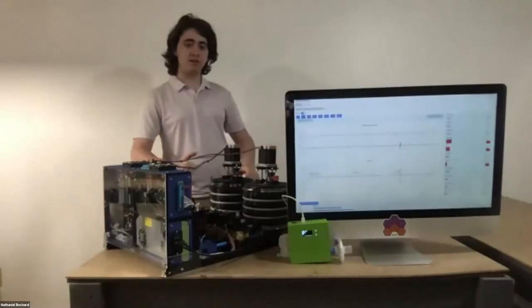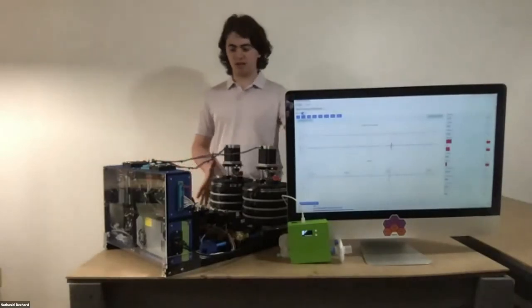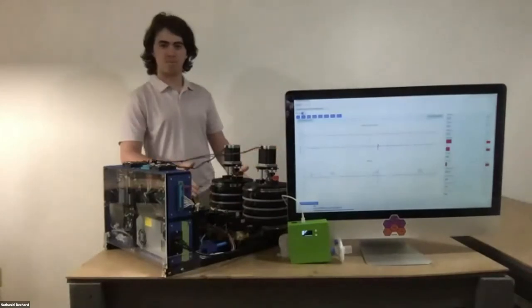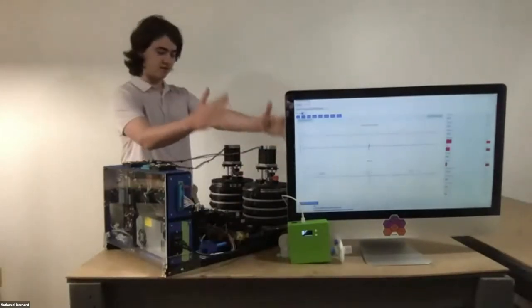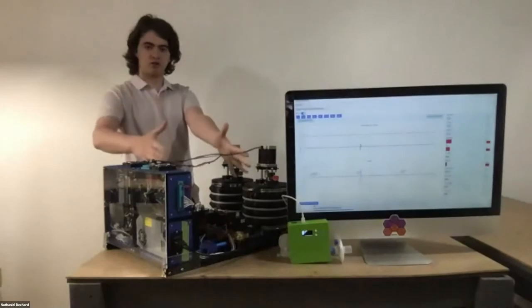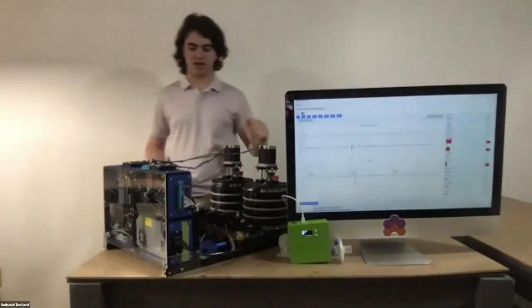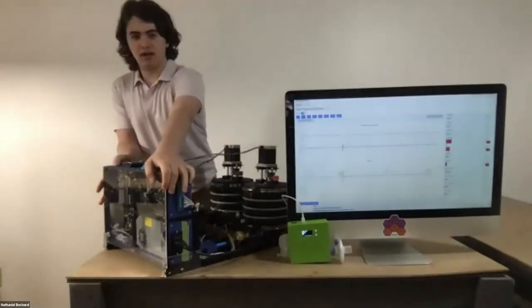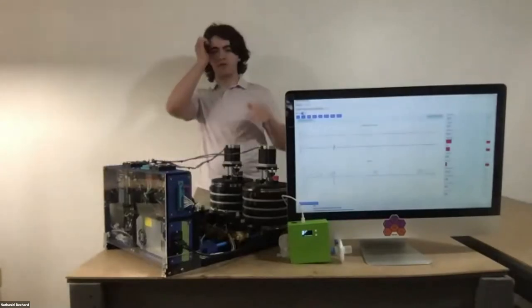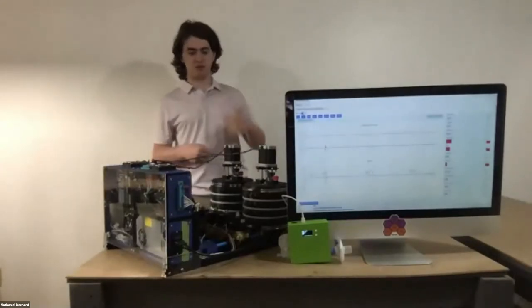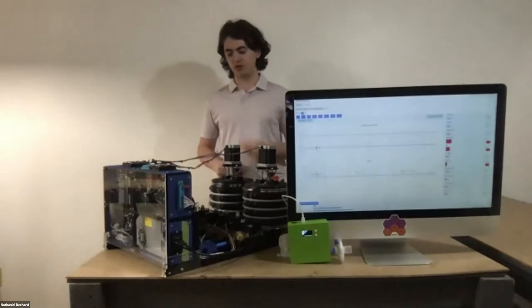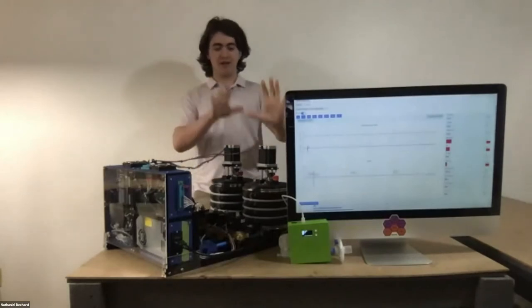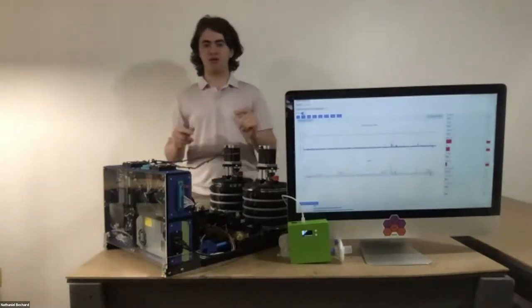You can see here that this PolyVent machine is very modular. I'm not sure how well you can see that, but you just have the bellows here, then a certain gas drive section, and this electronics module, all conveniently split up. Well, mostly for prototyping, but also because all this stuff can be swapped out.